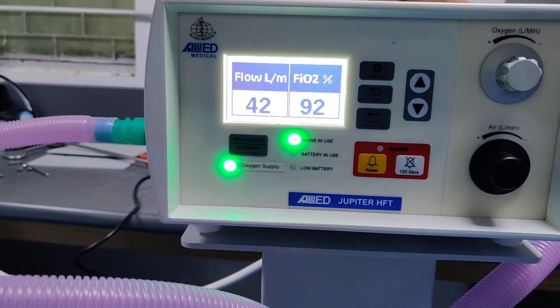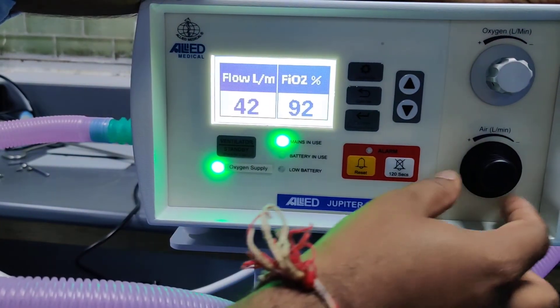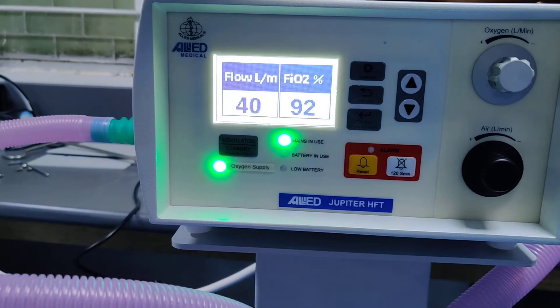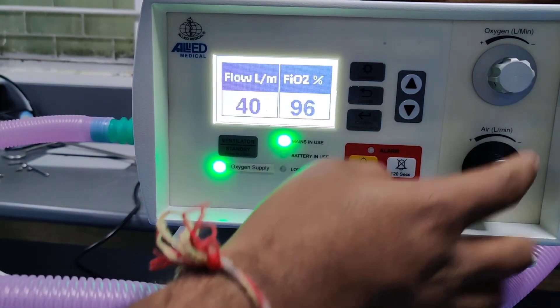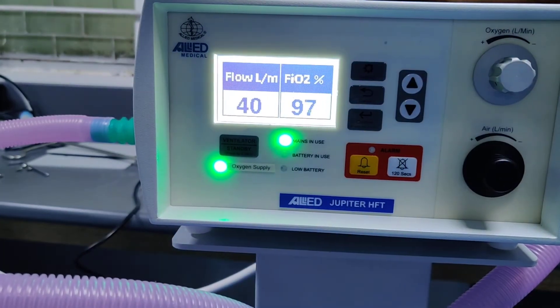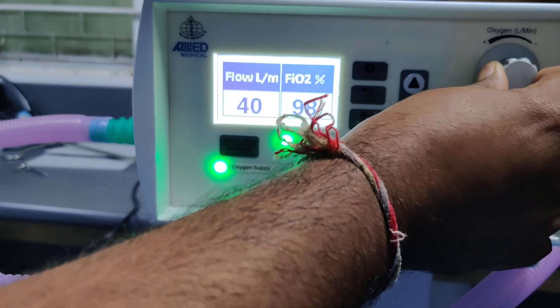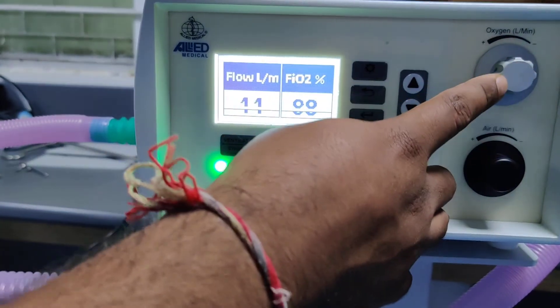For setting the flow rate, you can set it from 0 to 80 liters per minute using this knob. For the oxygen concentration, you can change the values from 21 to 100 percent using this knob.